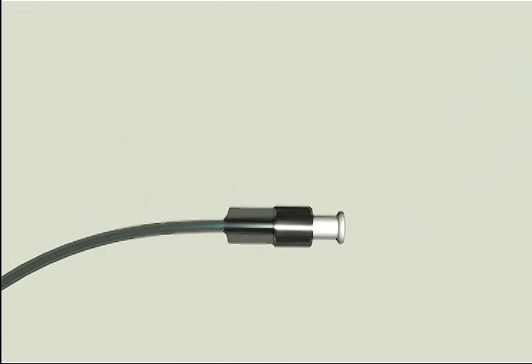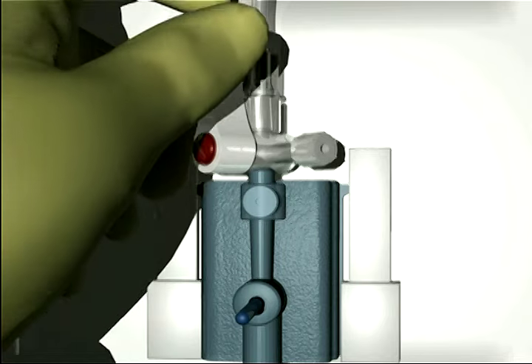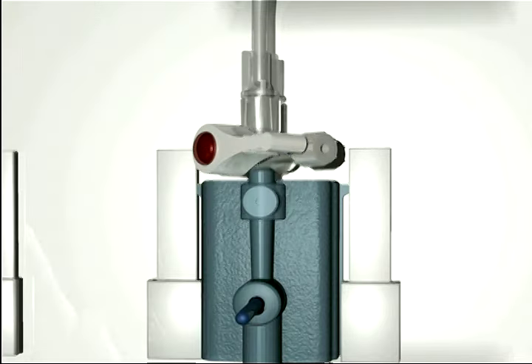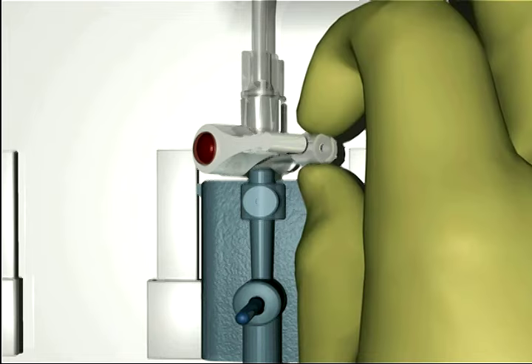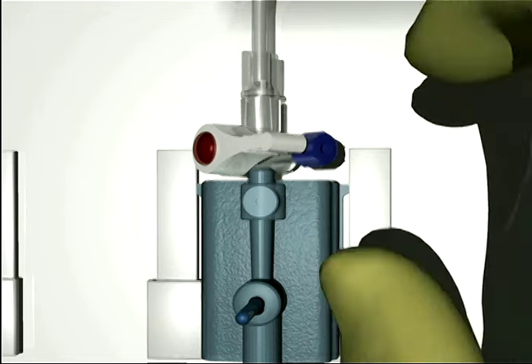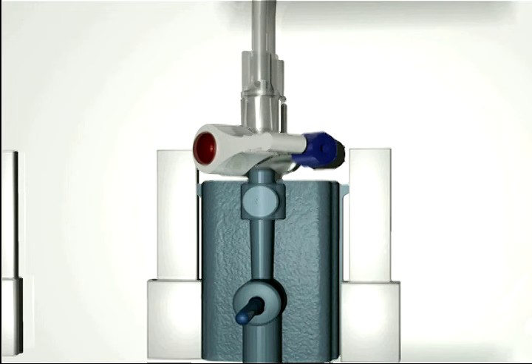After removal of any residual bubbles, connect the TruWave transducer to the bedside physiologic monitor for calibration. Step 6: replace all the opaque vented caps on the side ports of the system stopcocks with non-vented caps. Now that we have completed priming the system, we will need to calibrate the TruWave transducer with the bedside physiologic monitor using the following eight steps.